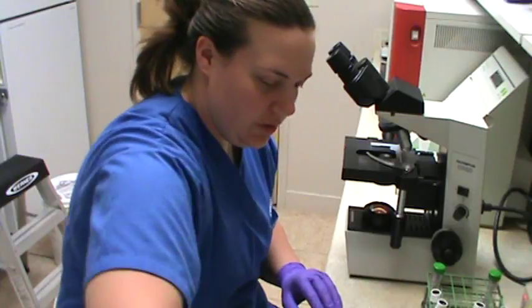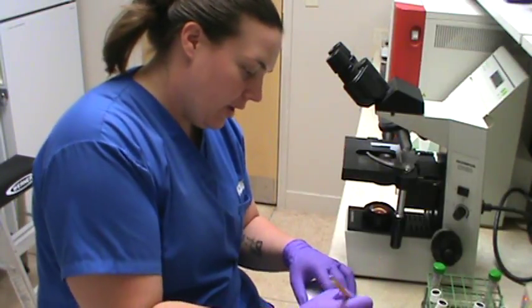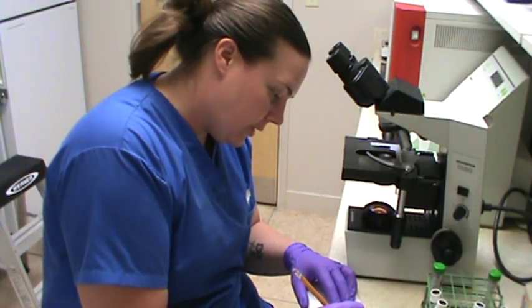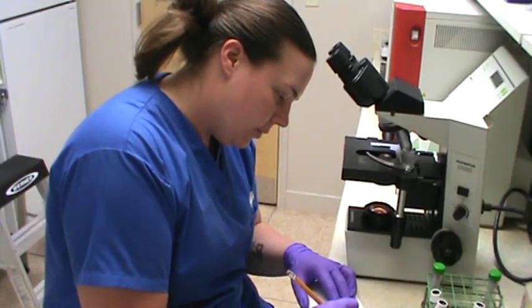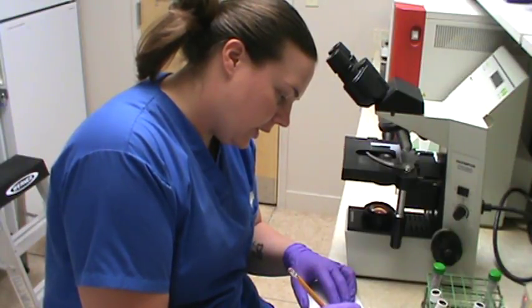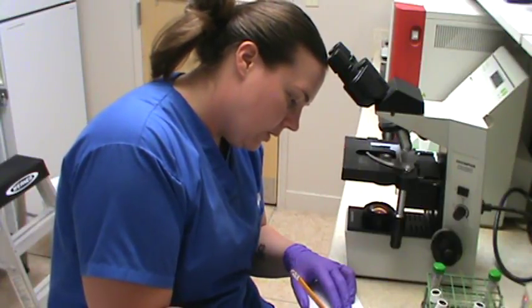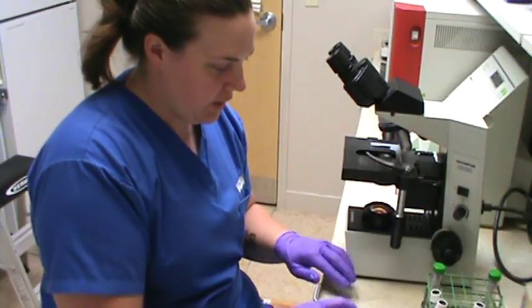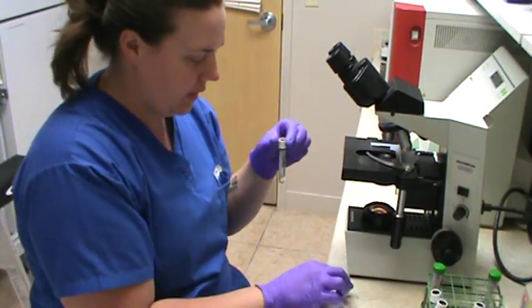So then I'm also just going, I lost my paper towel. So for minor, I'm just going to say macroscopically and microscopically, no agglutination. Alright, and then last but not least, we're going to do the same with our recipient control, and my slide that's labeled control.